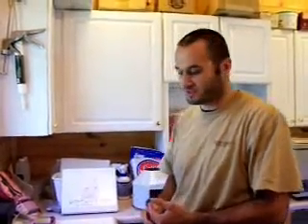I'm Jonathan Capon here from Light Livestock Equipment, and today we're going to show you how to do an IgG test for your newborn crias using the DVM rapid test.